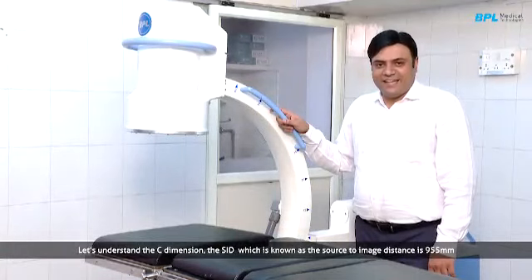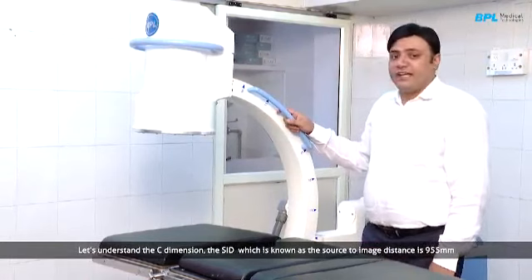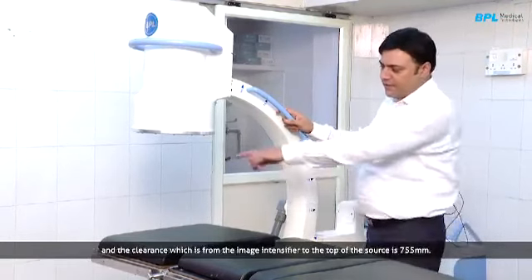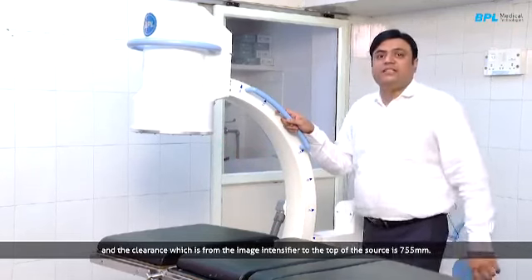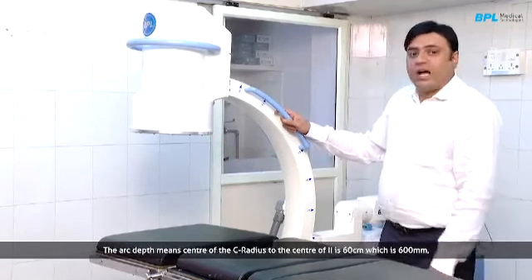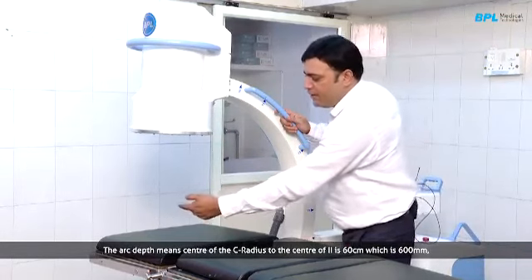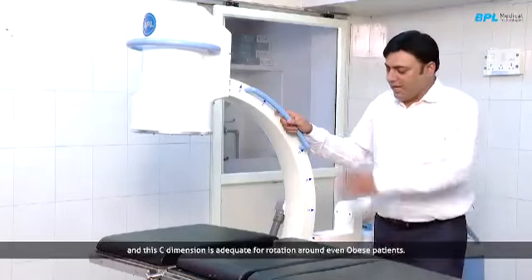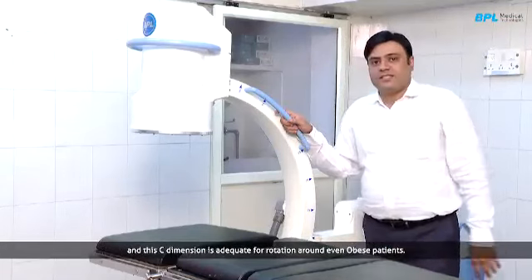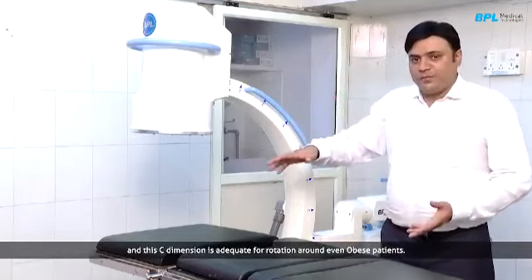Let's understand the C dimension. The SID, which is known as source to image distance, is 955 mm, and the clearance, which is from image intensifier to top of the source, is 755 mm. The arc depth, meaning the center of this C radius to the center of the II, is 60 cm, which is 600 mm, and this C dimension is adequate for rotation around even an obese patient.